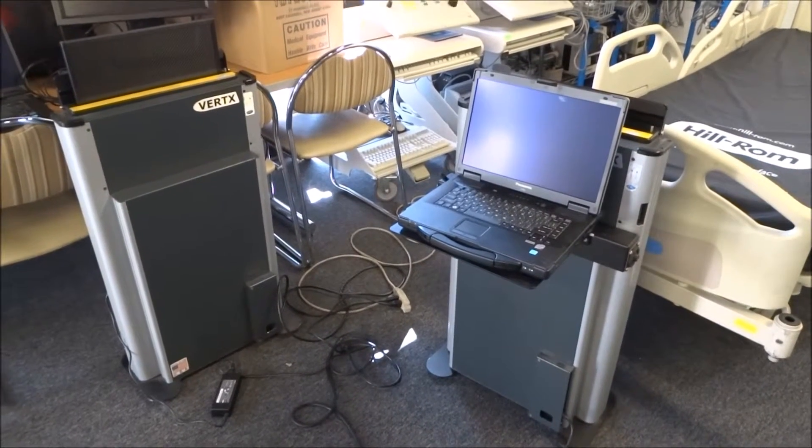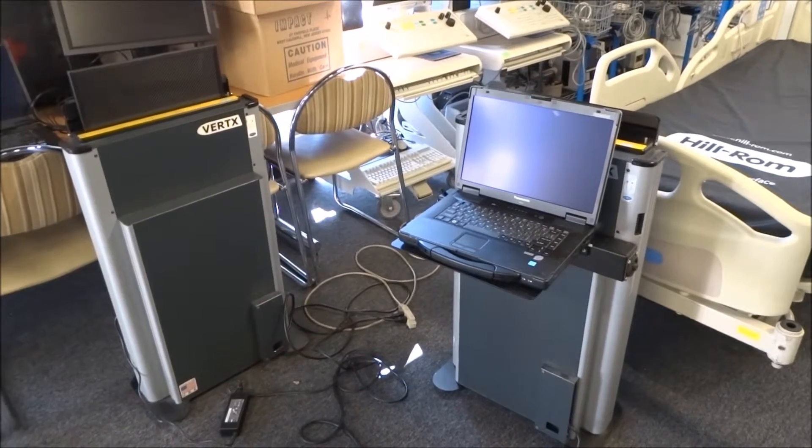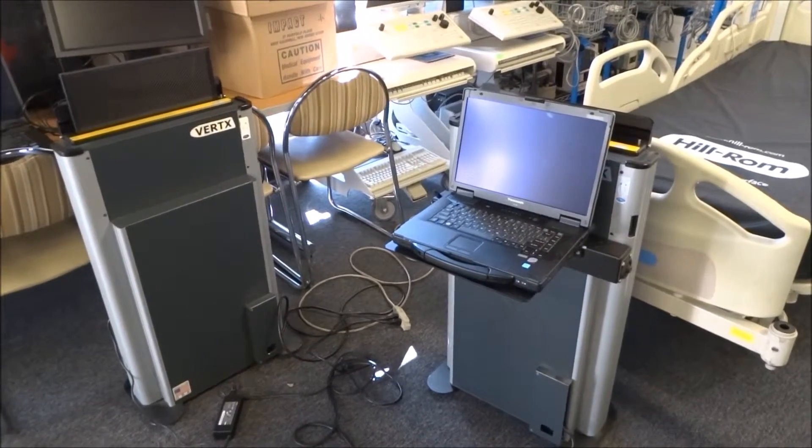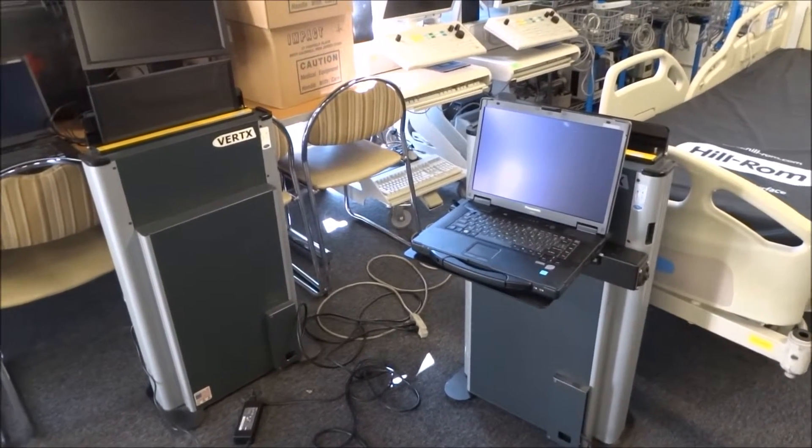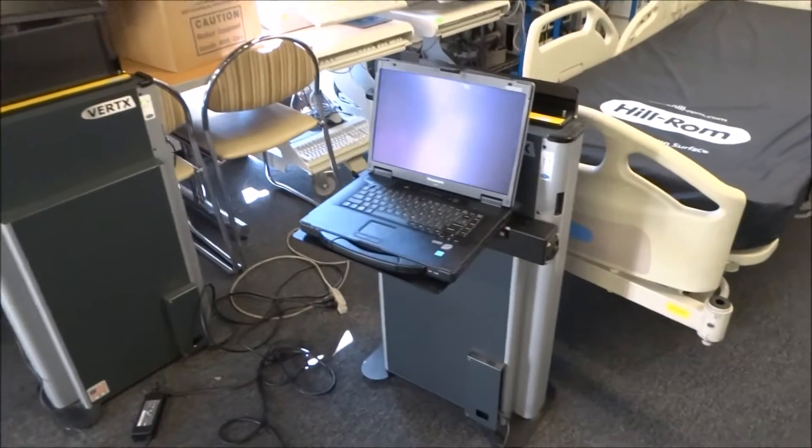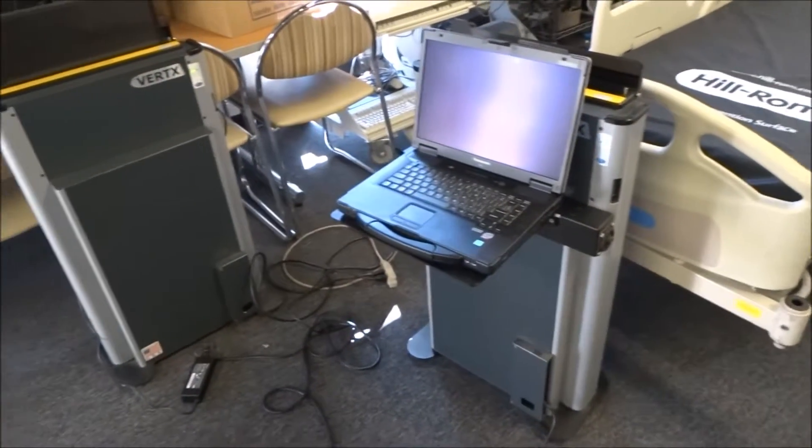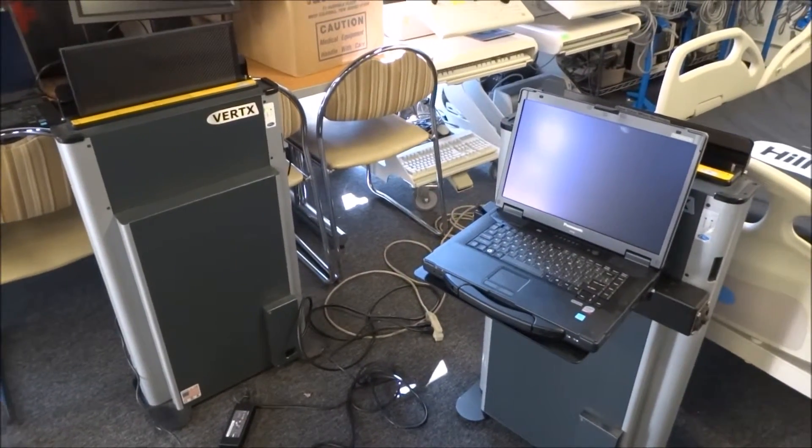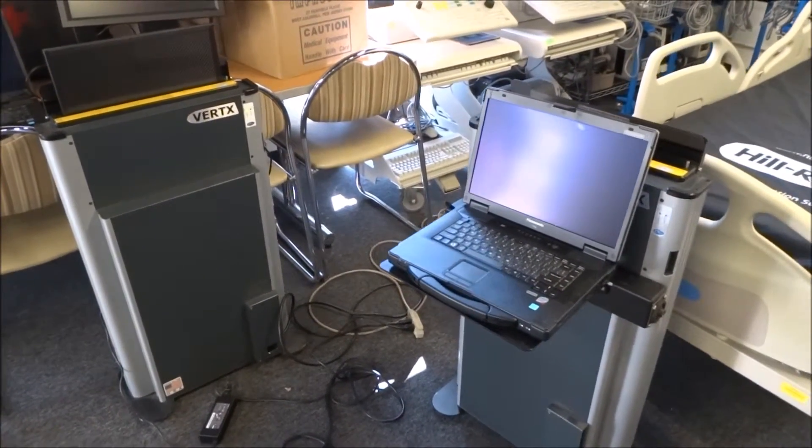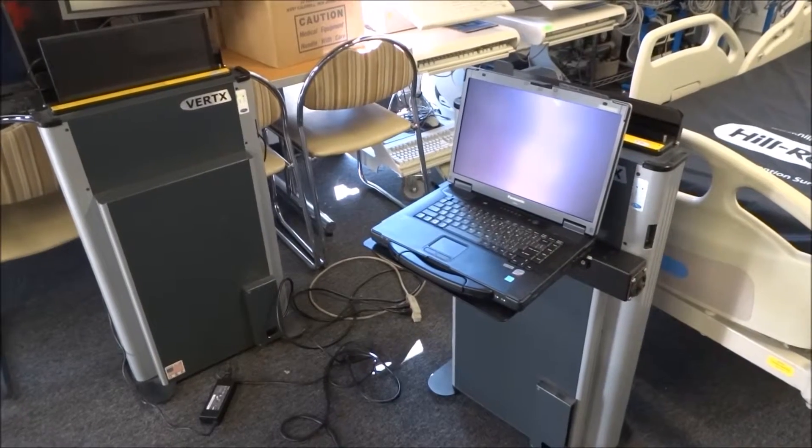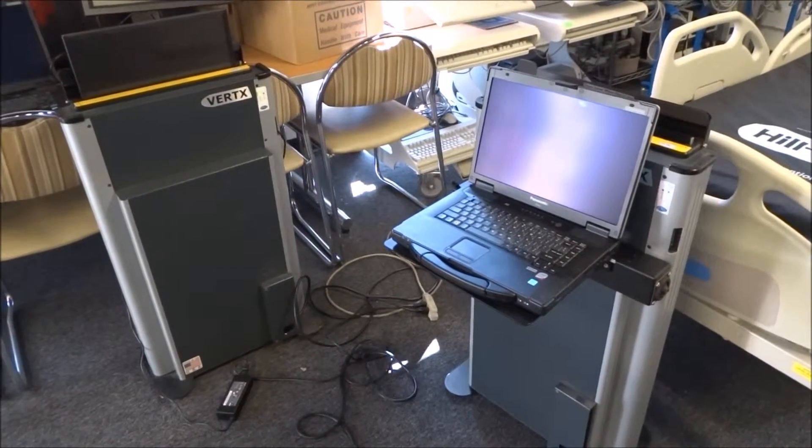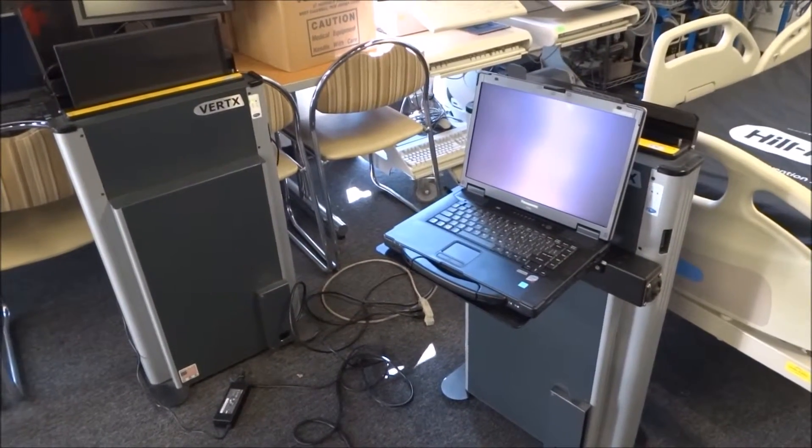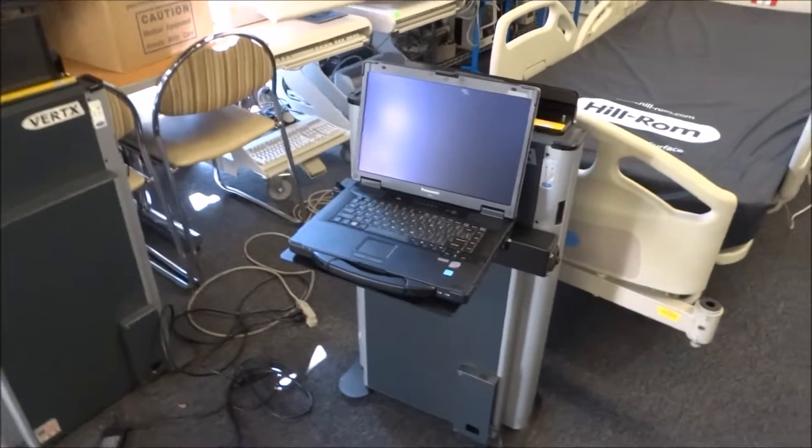We're at Hospital Direct Medical here in San Diego, California looking at digital x-ray processing equipment. The machines that we've got right now are the VertRX or the VertX x-ray processors and we're just going to go through a very brief overview with these.